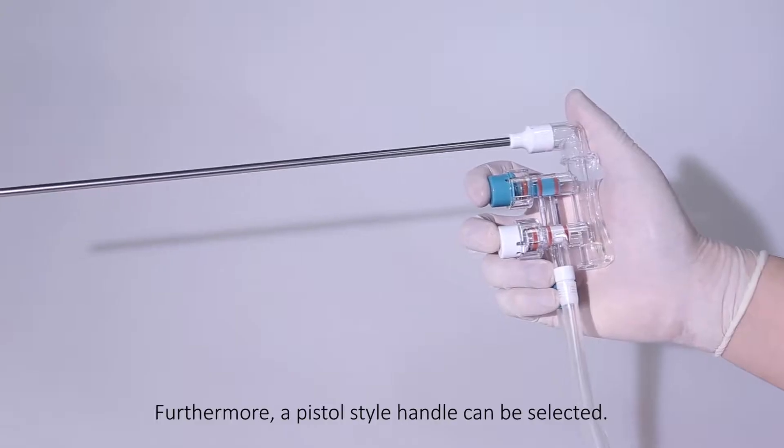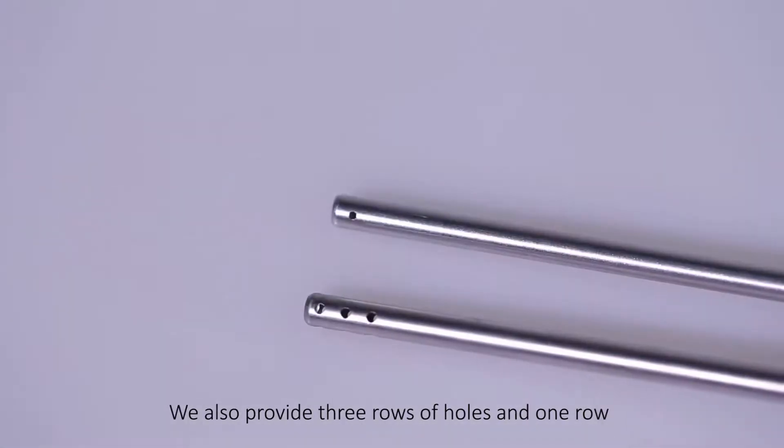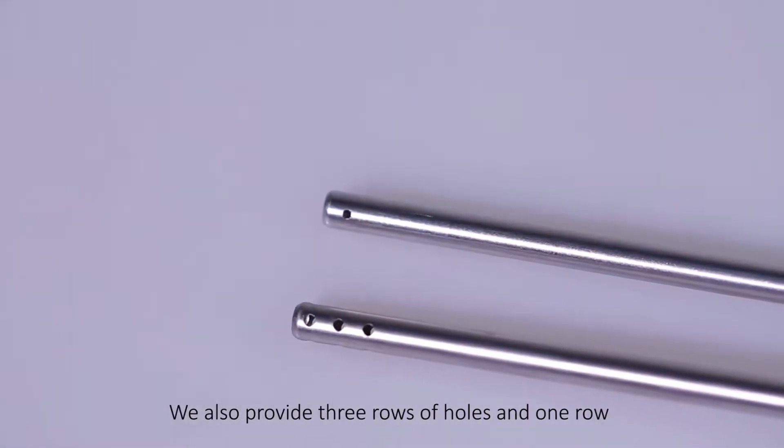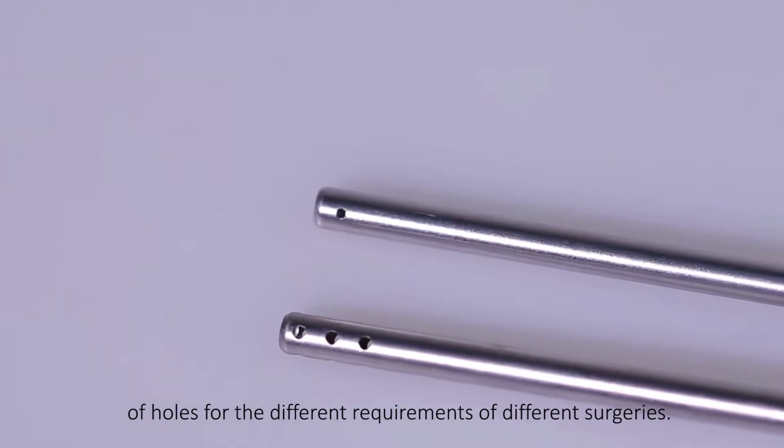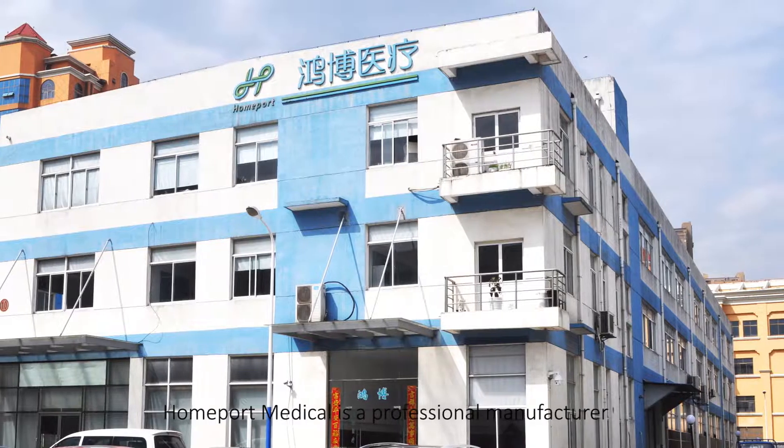Furthermore, a pistol-style handle can be selected. We also provide three rows of holes and one row of holes for the different requirements of different surgeries.